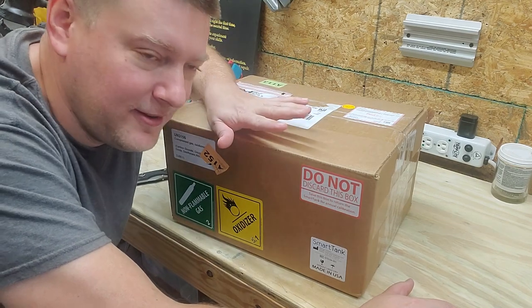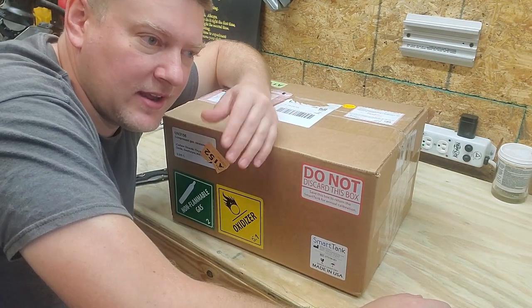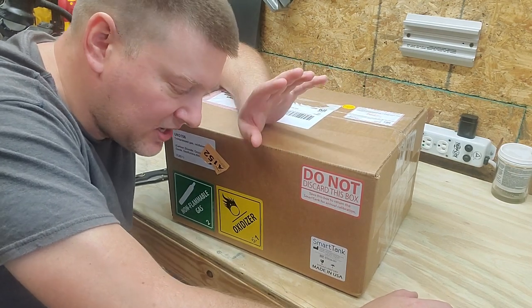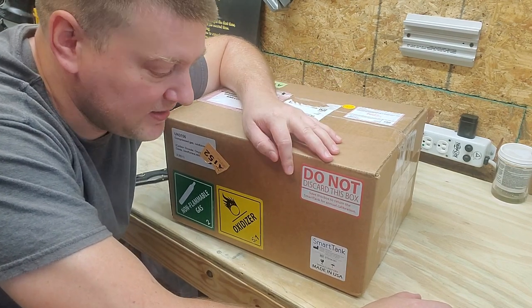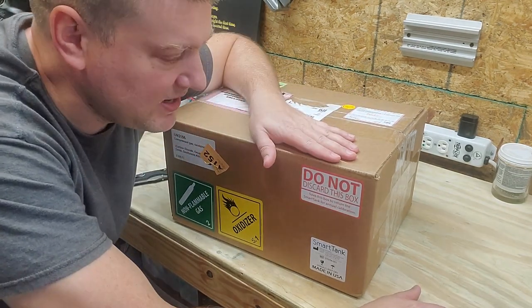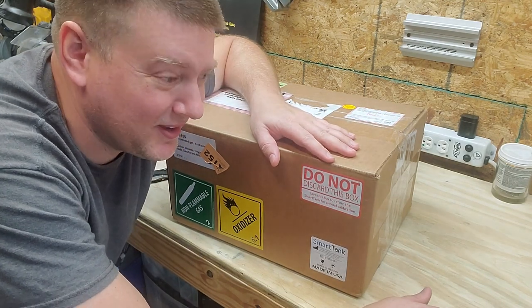It's a test device for testing end-tidal CO2 monitoring capnography devices. I did a video on it because I saw it at a trade show just once and I was captivated by it. So I contacted the guys from Smart Tank — they reached out to me and asked if I'd be interested in giving it a test run on their device, and I said absolutely, let's do this.